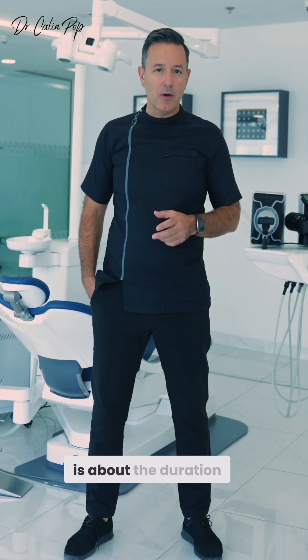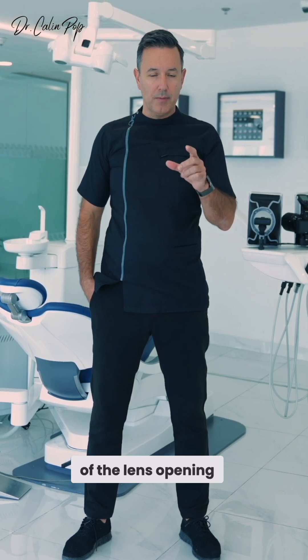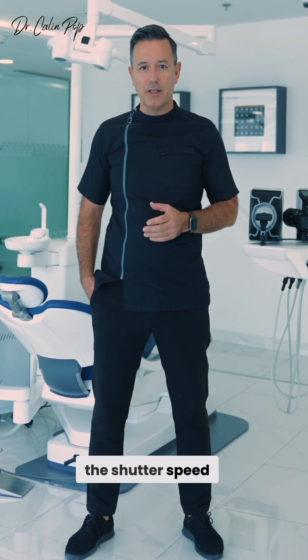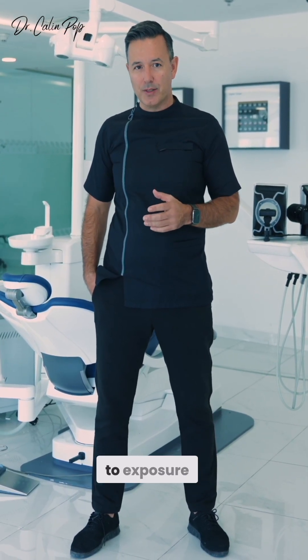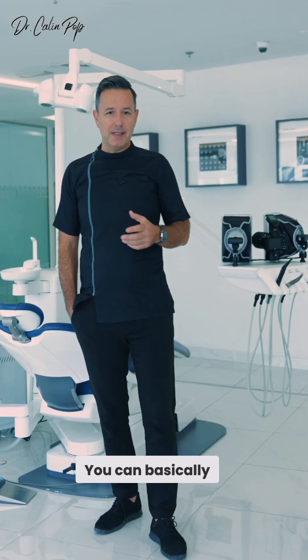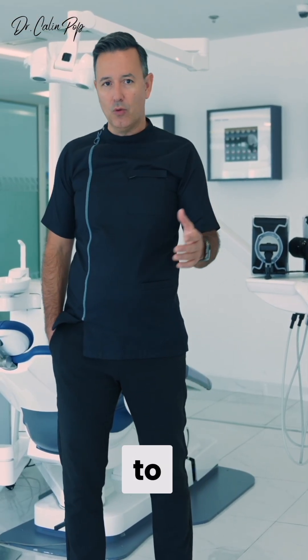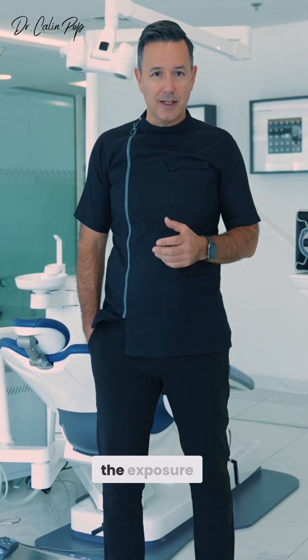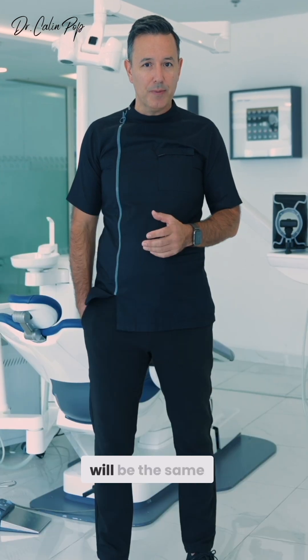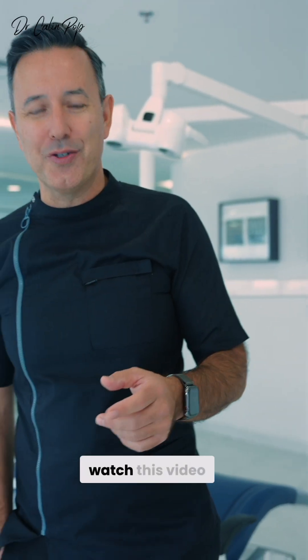The shutter speed is about the duration of the lens opening, but in dental photography the shutter speed is not so important with regards to exposure. You can basically choose any value between 1/50 to 1/250 of a second and the exposure will be the same. If you don't believe me, watch this.